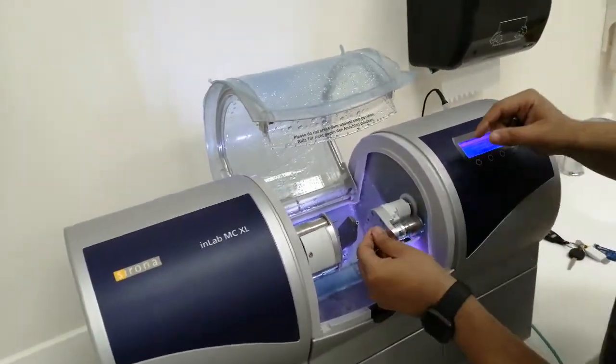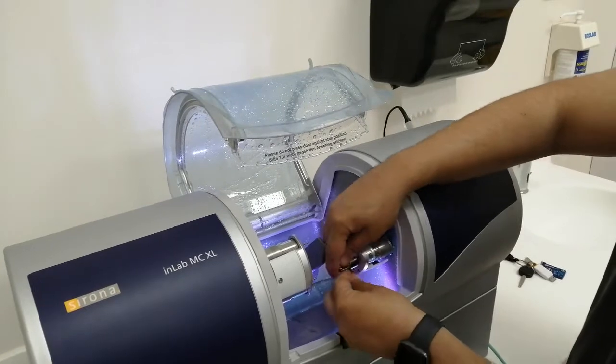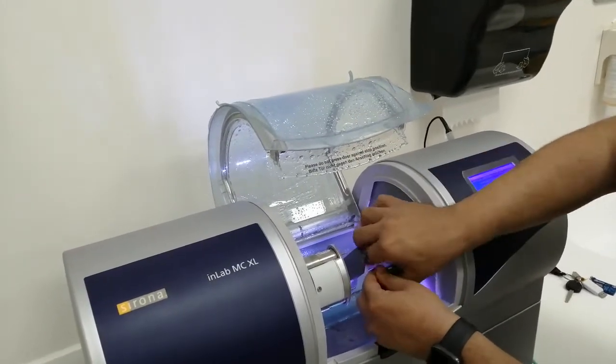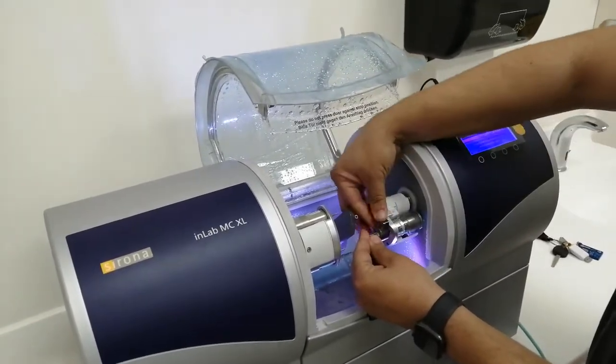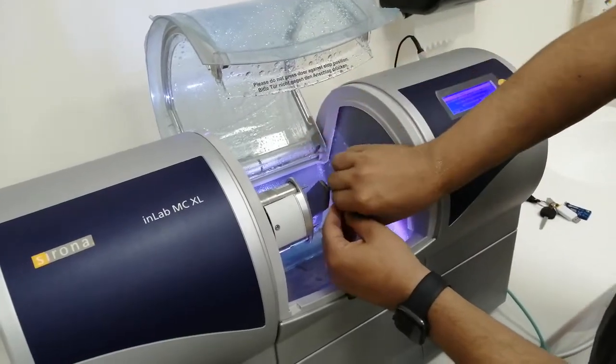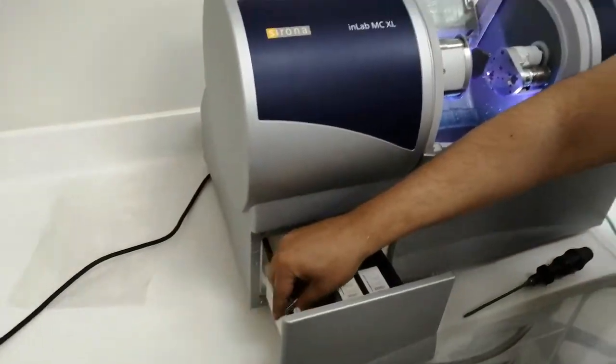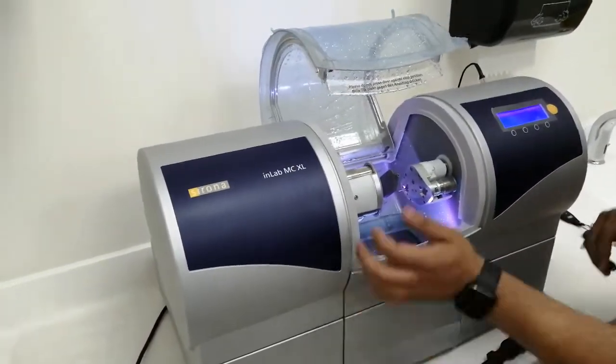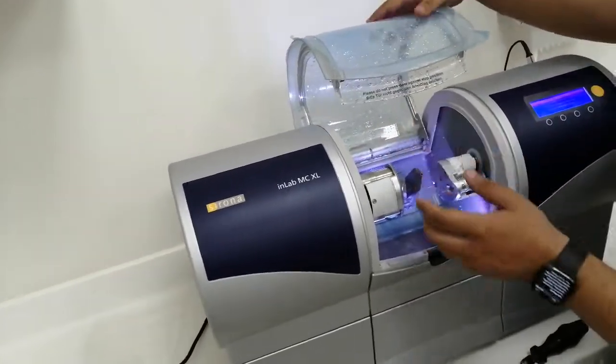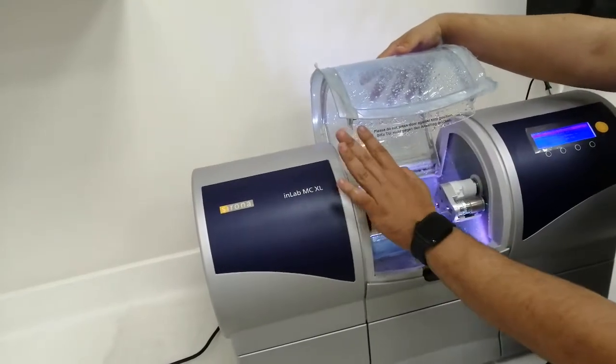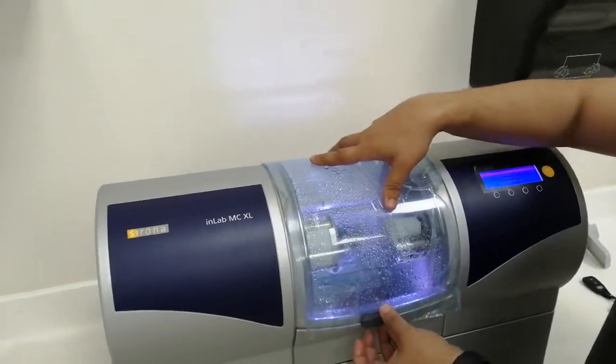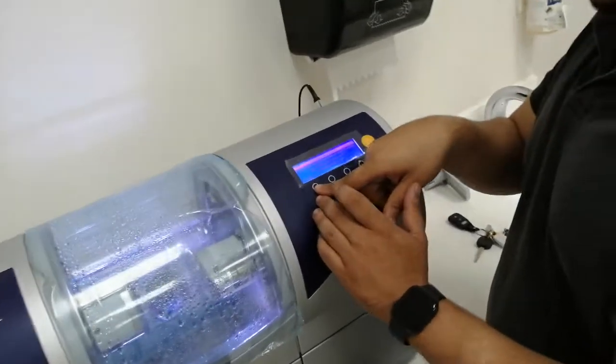Calibration pin installed. Now closing using the key - never use your hand. This special tool provides the proper torque. Listen for the click. One more time - you should hear the click. Then you can put the tool on this and close the door.